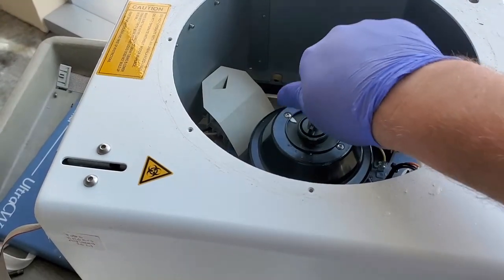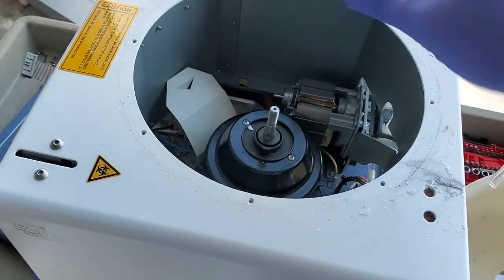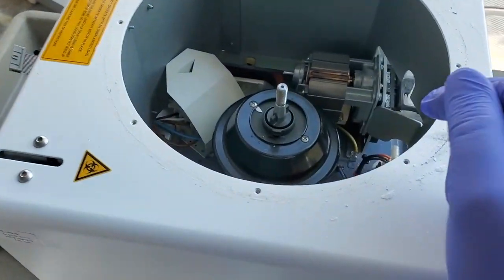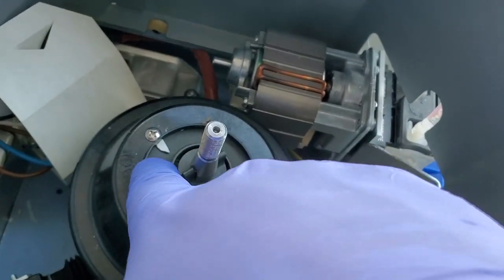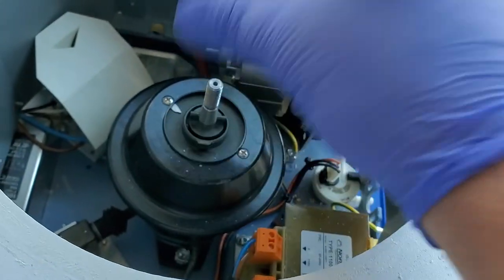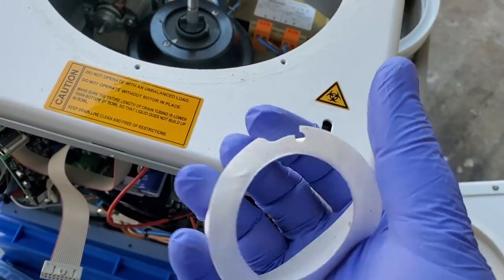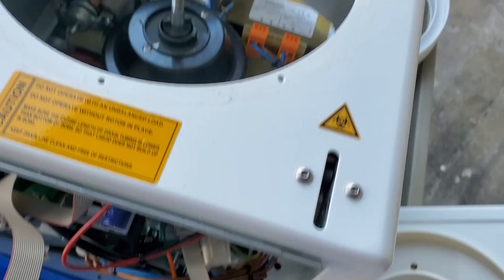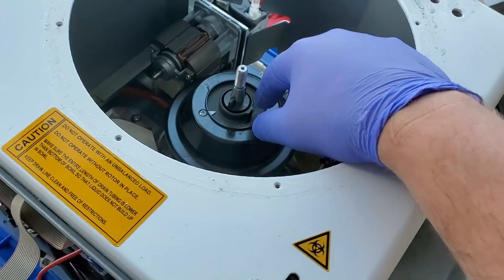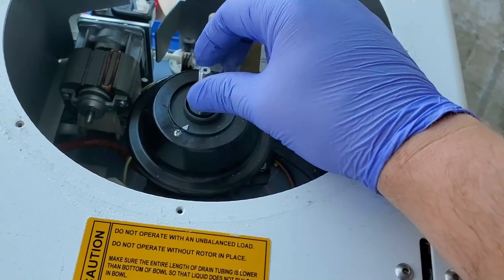The motor was completely frozen up, but when I removed everything creating stress in the bowl cavity it spun just fine. That was the first problem — the motor was completely seized. The silicone seal was glued to the motor itself, and as it was pulled up it ripped part of the seal, so the seal has to be replaced no matter what. The motor itself might also be bad, so I'll test the Hall effect sensor with an oscilloscope. I'd estimate this motor is probably around $1,500.